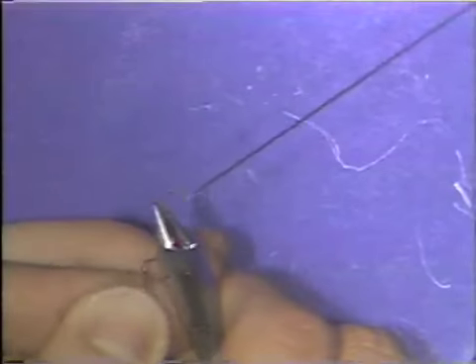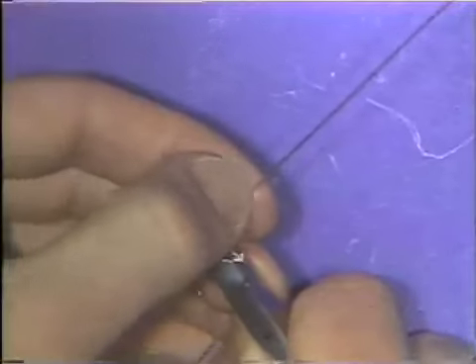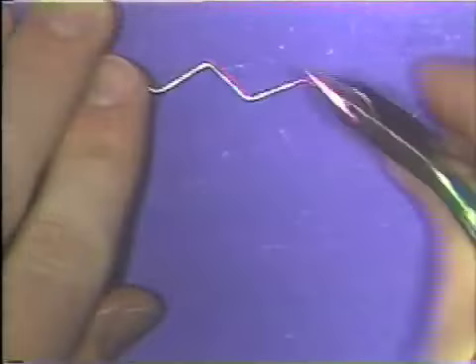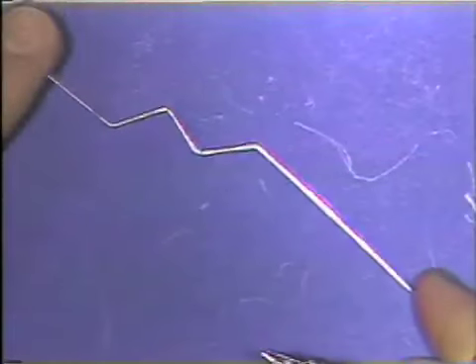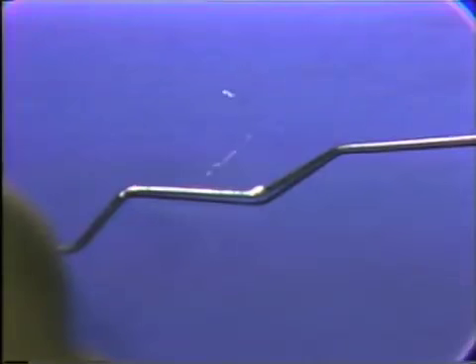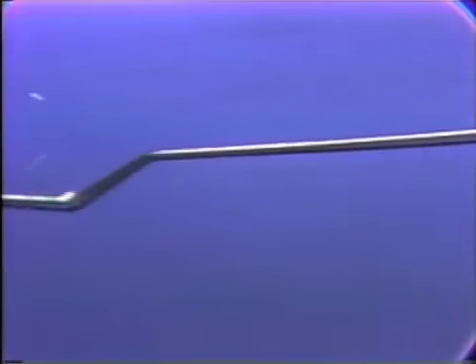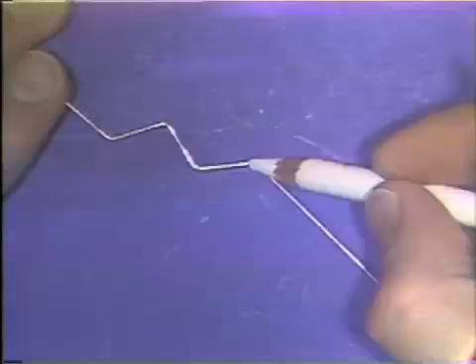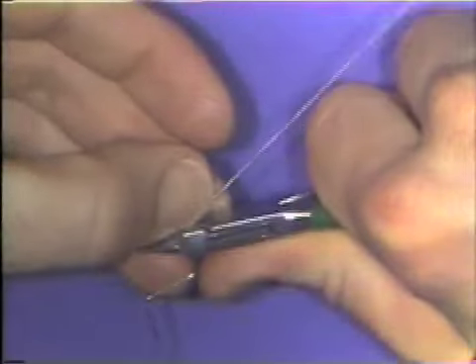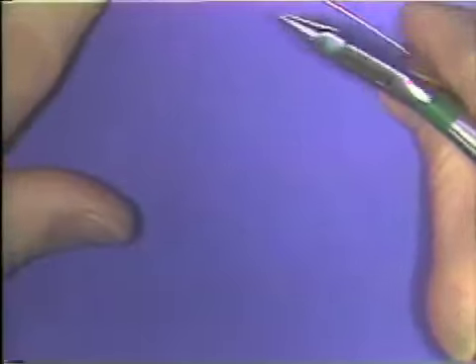grasping the wire in the flat base portion of the plier, and a compensating downward bend is made in the wire to adapt it to the tabletop surface. And now this next leg of the wire is also flat. This last portion of the wire still is off the table, and so a small mark is made at the spot where the wire leaves the table, and again a small downward compensating bend is made in the wire.